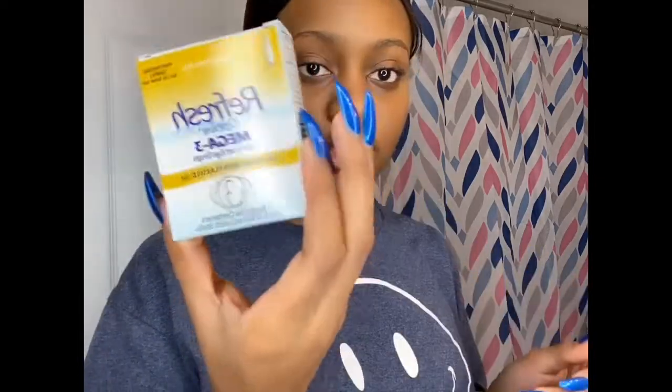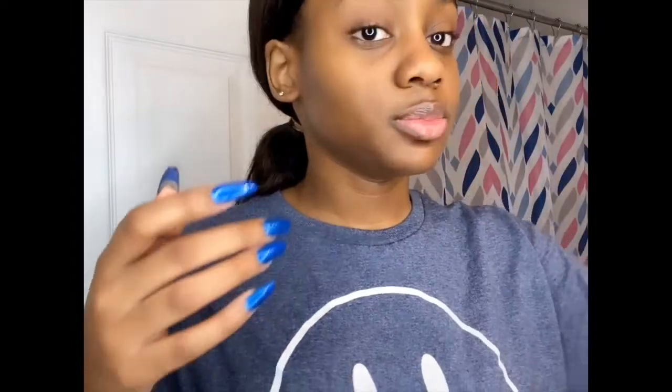And just like that, it's in! You just have to blink a couple times; your eyes might water a little bit afterwards, but that's about it. This is the solution I use. I also have these lubricant eye drops — sometimes my eyes get dry in my contacts, so they gave me these. Sometimes after I put my contacts in I'll just squirt some in there just because I don't want any irritation. It's like a little dropper like this, and you just put some in there.